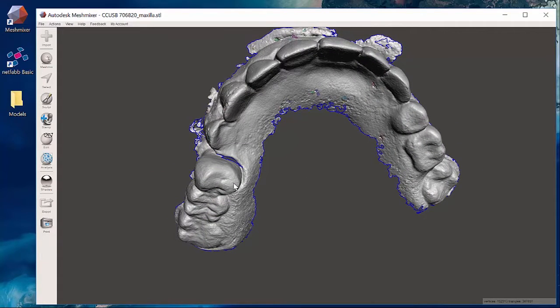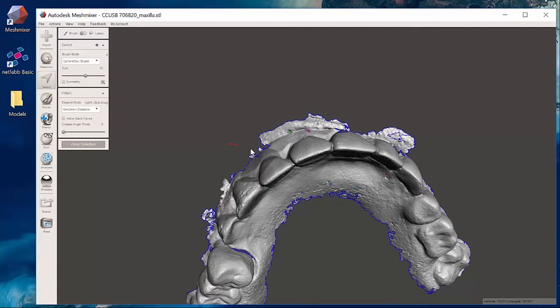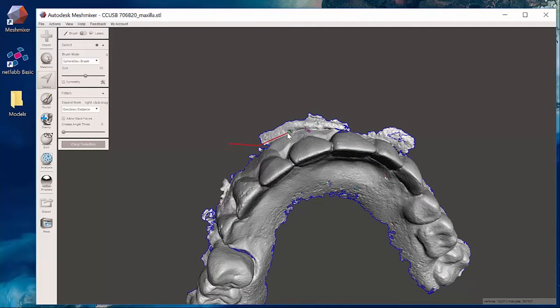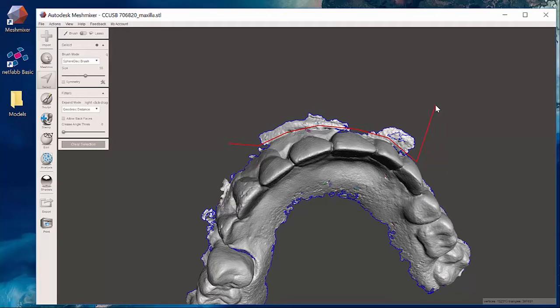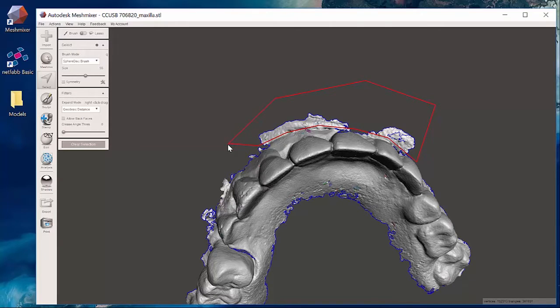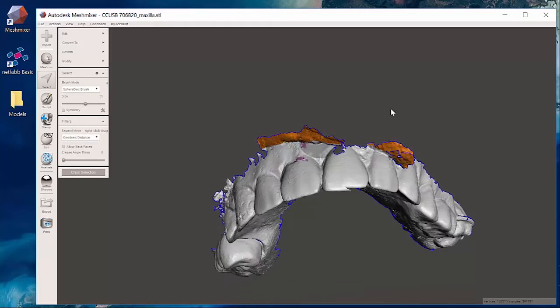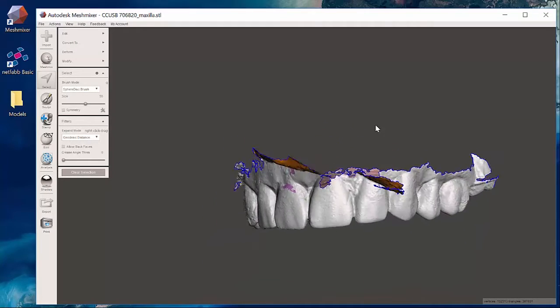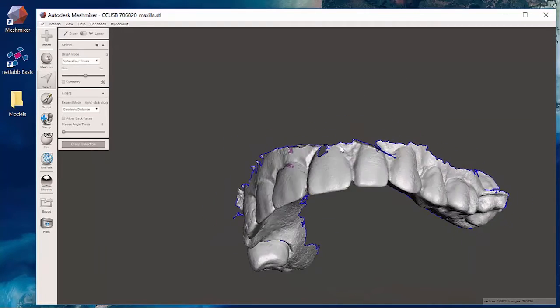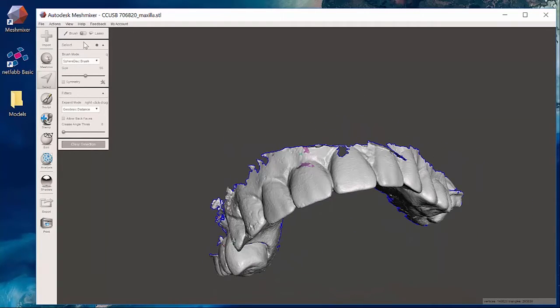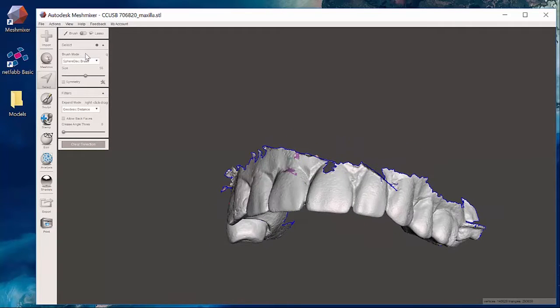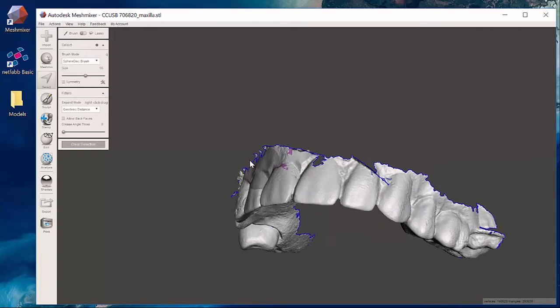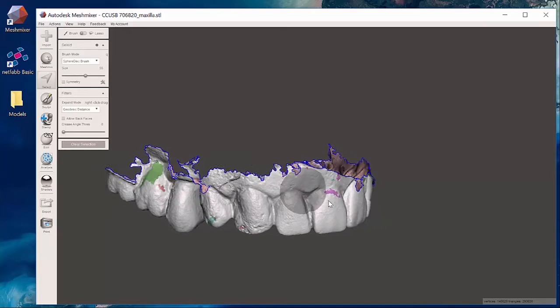Alternatively, in the select feature I can also draw a line. If I left click once and then just click a few different positions along this outside portion, this is like taking a buffalo knife and trimming the outside part of the model. Clicking on the starting point will select everything in a nice clean linear fashion. Hitting the X key on my keyboard or clicking the discard button starts to clean it up.